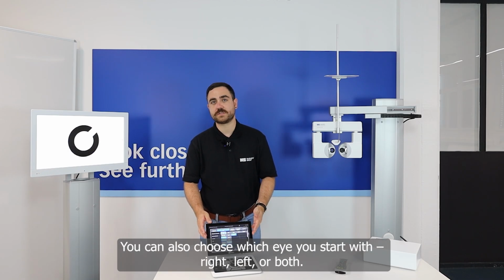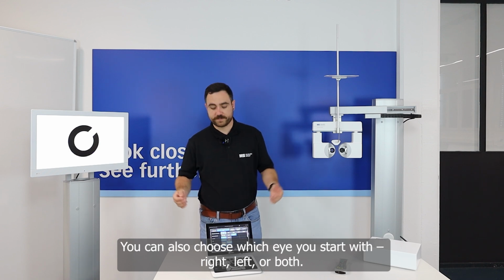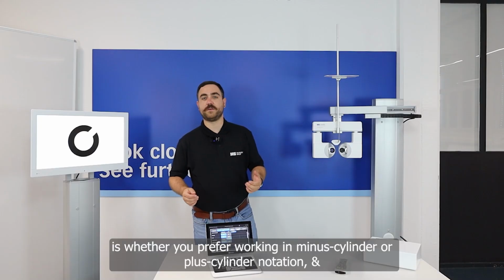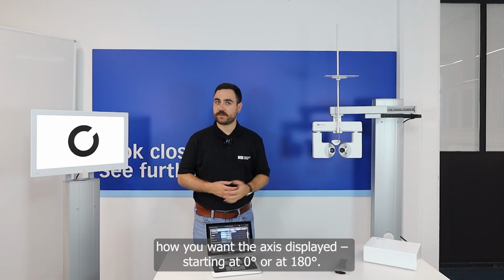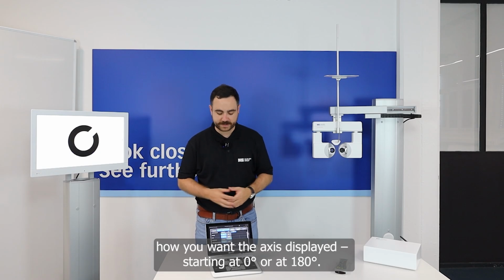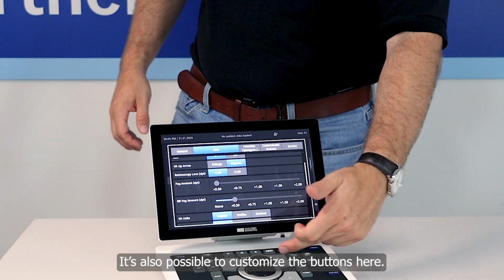Also, you can choose which eye you would start with. You can start with the right or the left eye or with both. Then also interesting is whether you prefer to work with a minus cylinder or a plus cylinder. Also how you would like to describe the axis: you can start with 0 but also with 180 degrees. It's also possible to customize the buttons here.